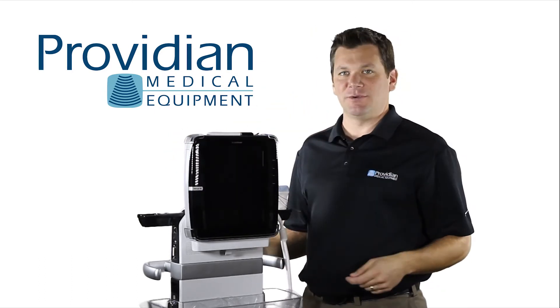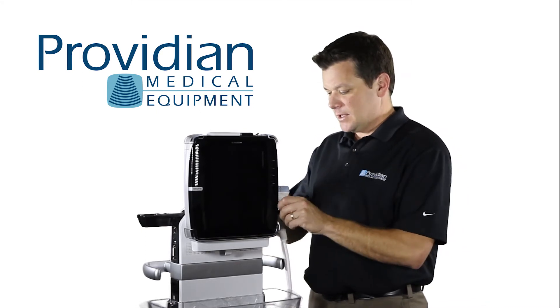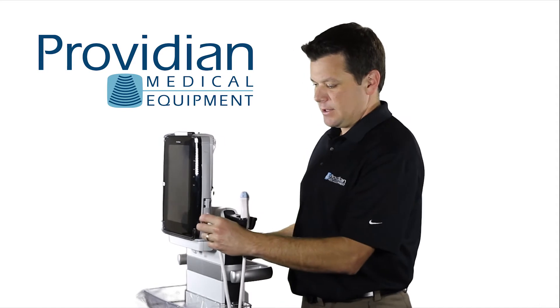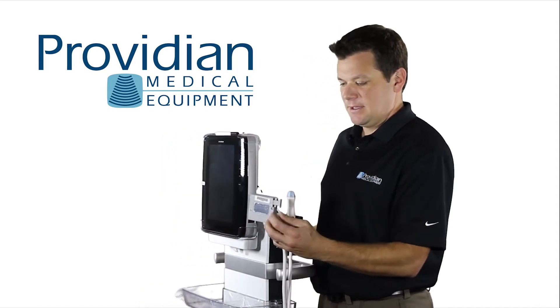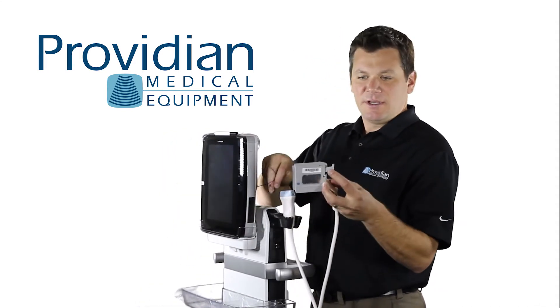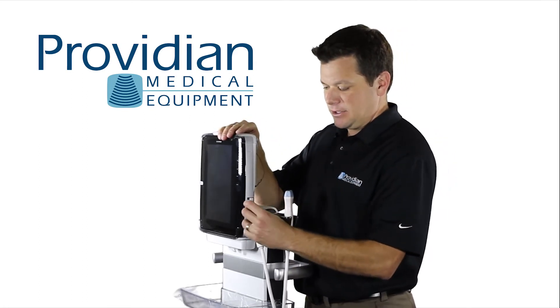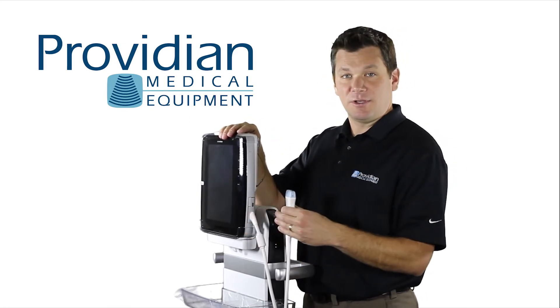You can move your stylus string to the back. For the transducer connection, the transducer will come disconnected — a little cartridge like this. This pops out and it will be on top. Slide in the cartridge, push down, and you're all set to go.